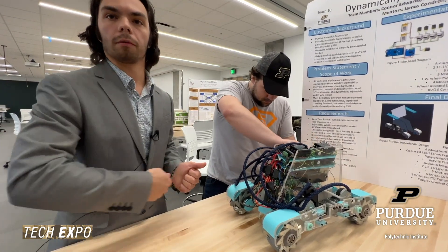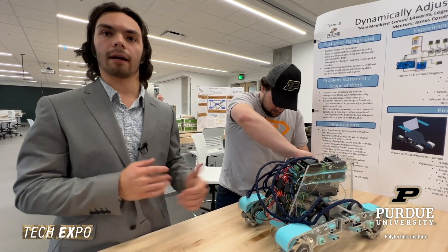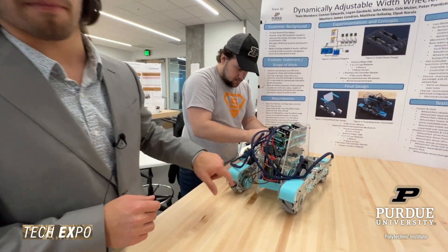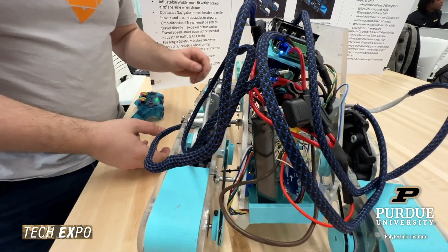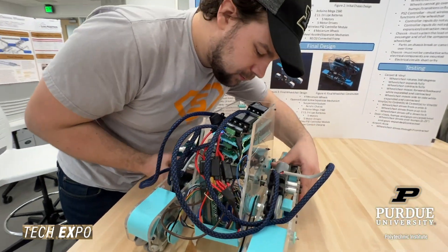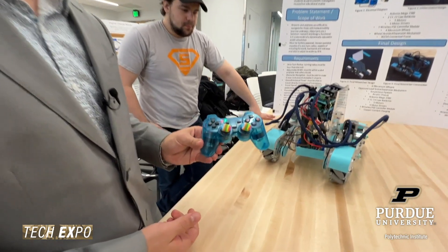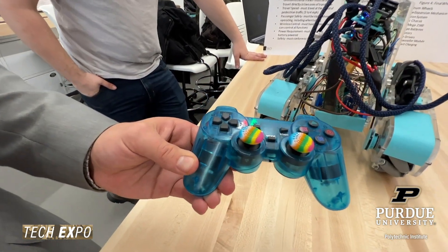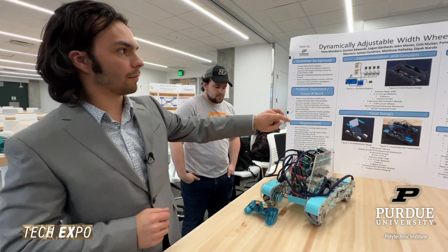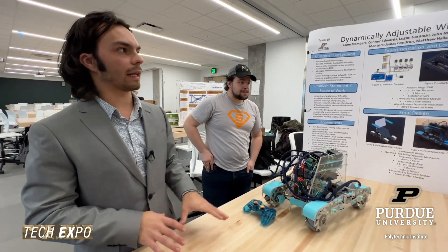The previous version was powered by a wall wart — you plugged it into the wall — so it wasn't battery-powered. That was a major improvement we made: it's now powered with a LiPo battery, so you don't have to be wired in or tethered. We also used a PS2 controller wirelessly to control the device itself.